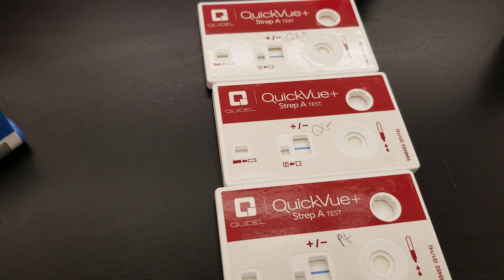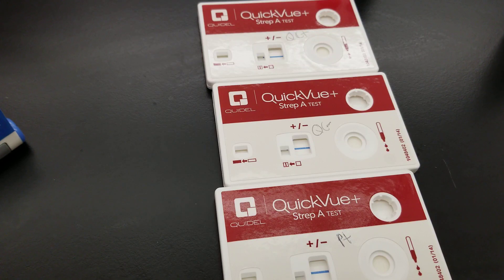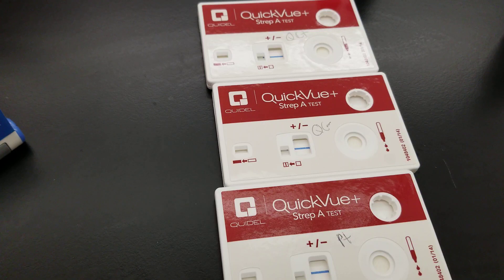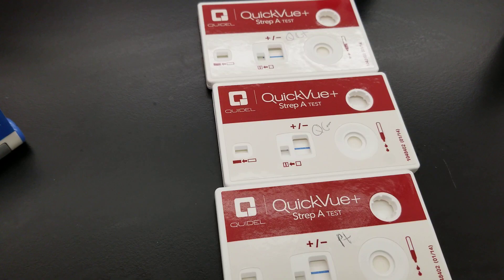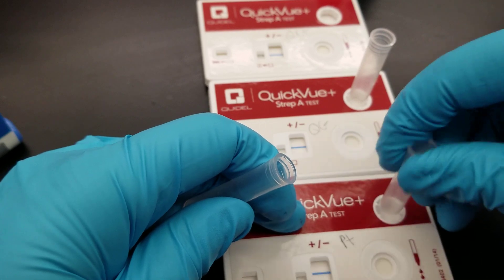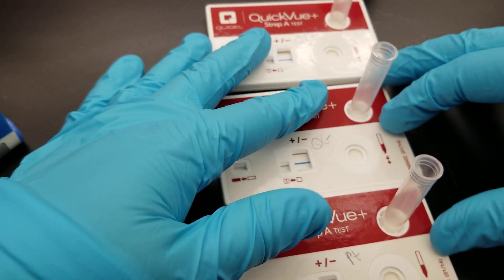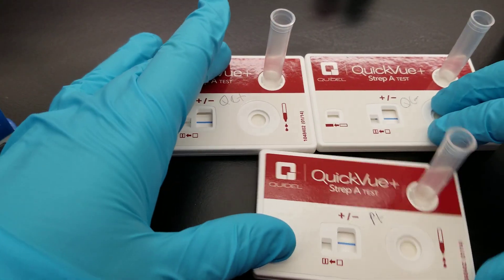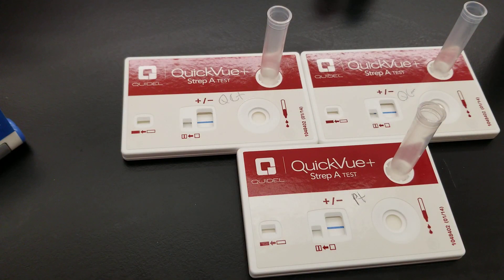First things first — we use extraction fluid. Extraction fluid is used to liberate the antigen from the bacterial cell wall. An antigen is part of the identifying piece of the cell wall or cell membrane of the organism, and it's what causes an immune response.